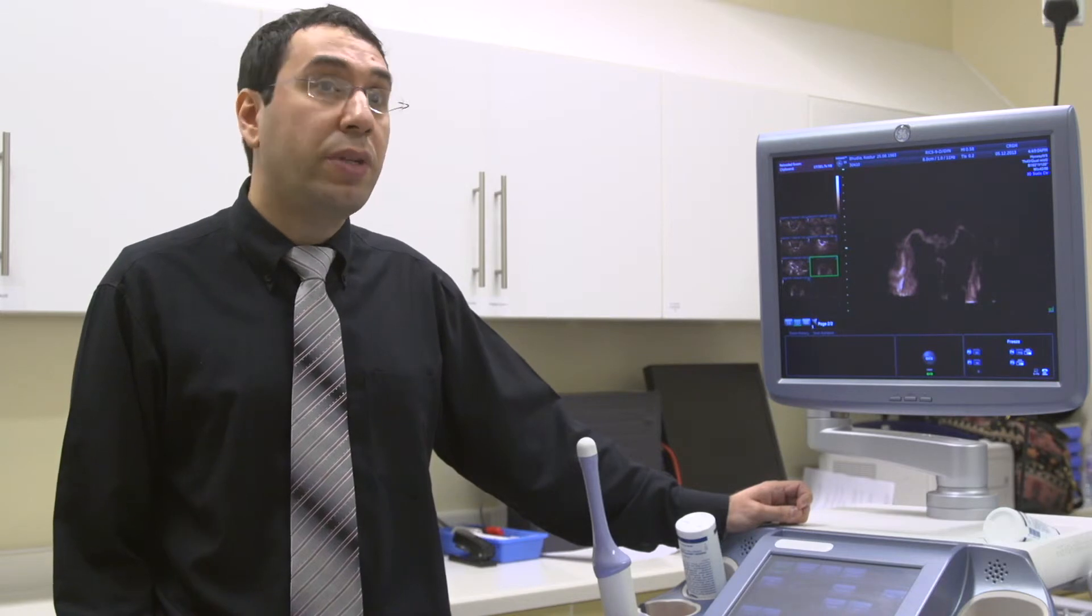I am pleased that CRGH was among the first clinics in London to introduce a procedure called 3D HyCoSy, which stands for three-dimensional hysterocontrast sonography, where we inject a specific dye inside the uterus and you are capable of checking the tubes and the uterus under ultrasound guidance.